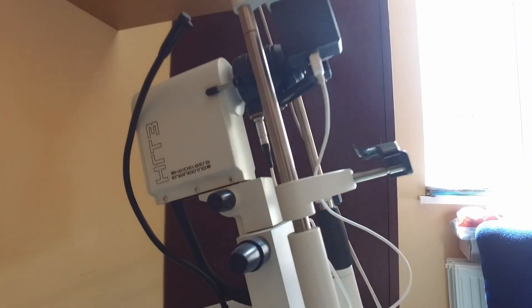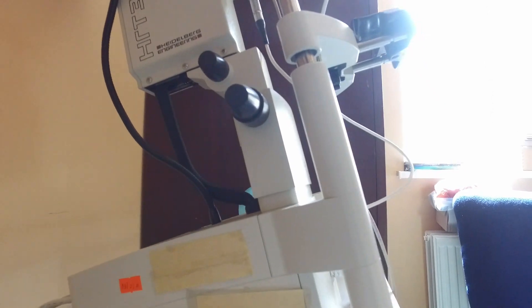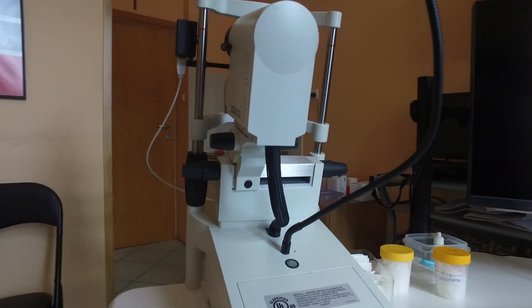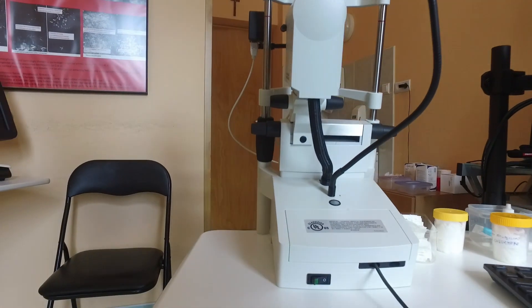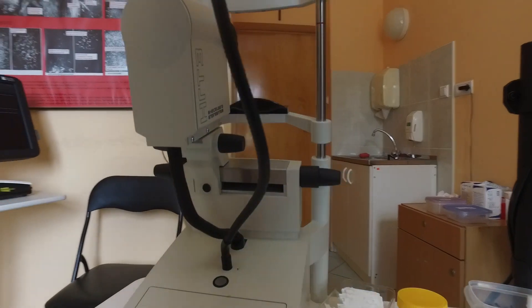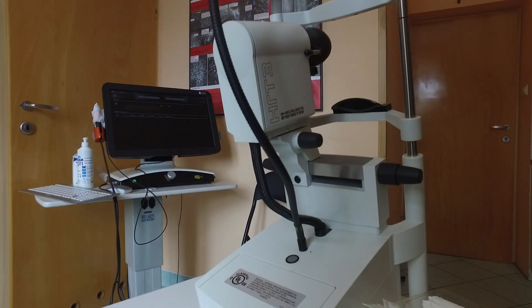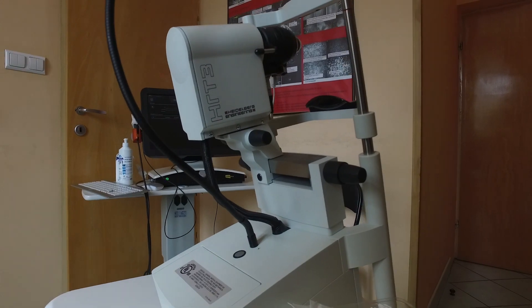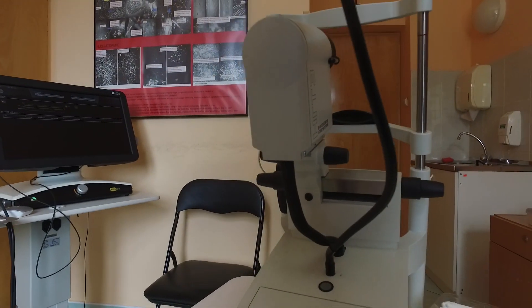This is our old HRT3 — it's super old, almost as old as I am, and was one of the first on the market. This one is half a month old and is one of the last produced HRT3s, and it looks very much the same as the old one. It's made of a high quality metal body and will probably survive an atomic bomb.